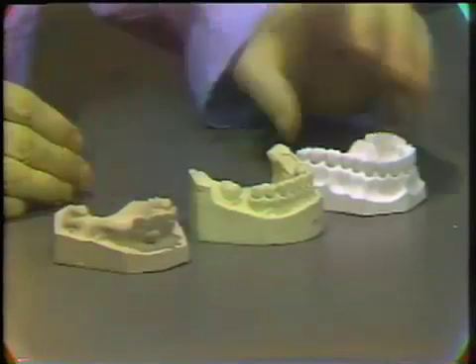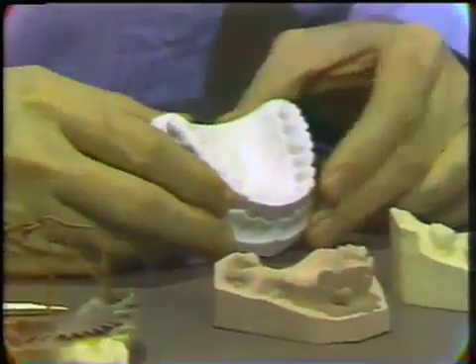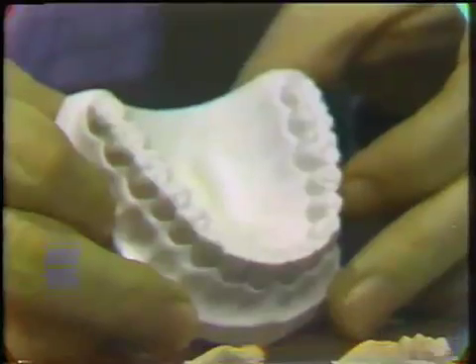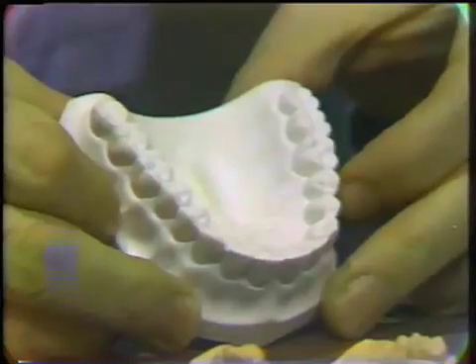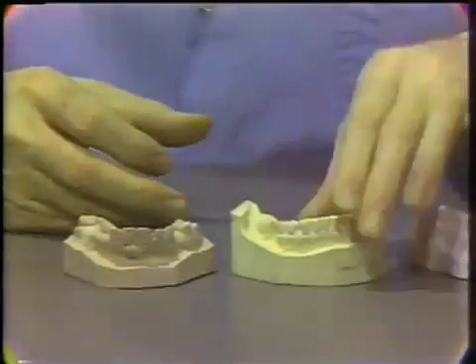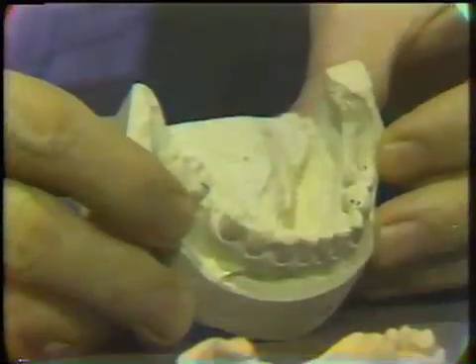Of the various materials used in dentistry, the most commonly used are those of the gypsum products and metal dies. The most common material is dental model plaster. This is a full maxillary model, and also used in this particular application would be a material called regular stone, or sometimes called cast stone.